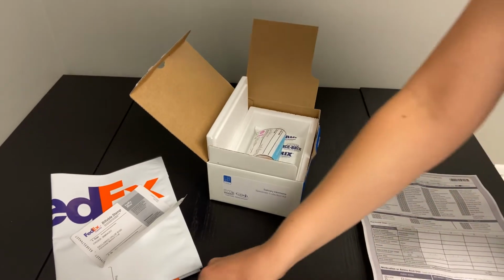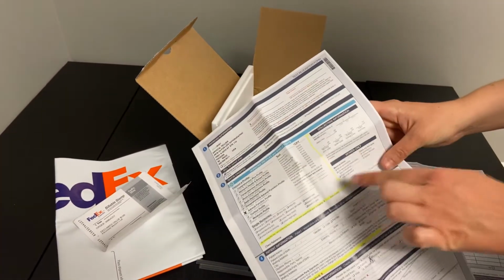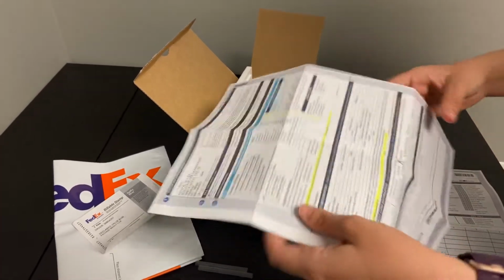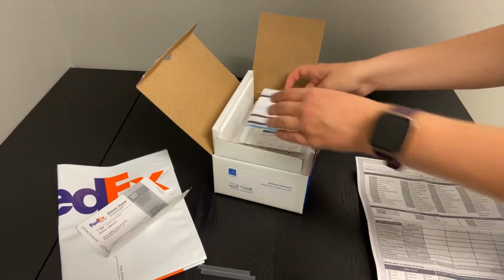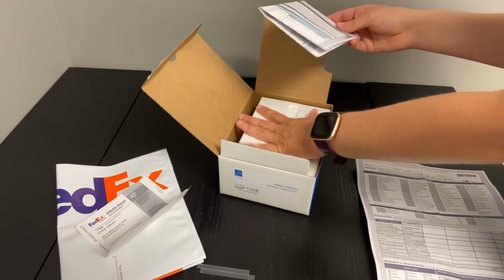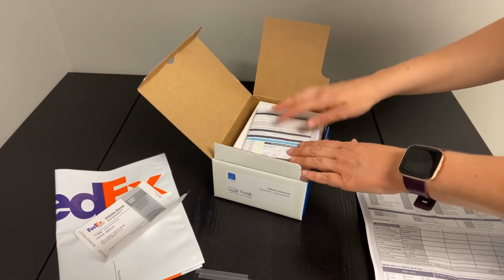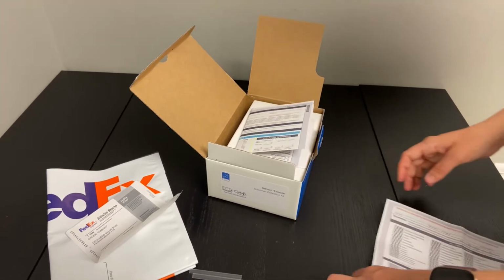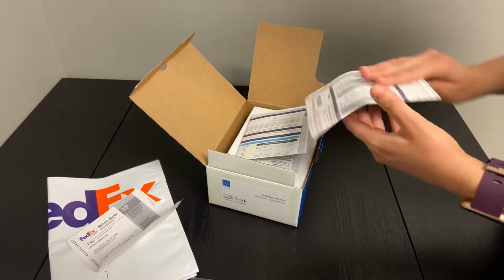All of these little straws will have been discarded. You'll make sure all of this collection information has been filled out, as well as your demographic information. You'll fold this up into the smaller pieces here, and then really the best option is to set this requisition either on the back side of this styrofoam box or on the top, because the condensation from the ice will cause the ink to run. You want to make sure that your information that you so wonderfully put on there is nice and legible.